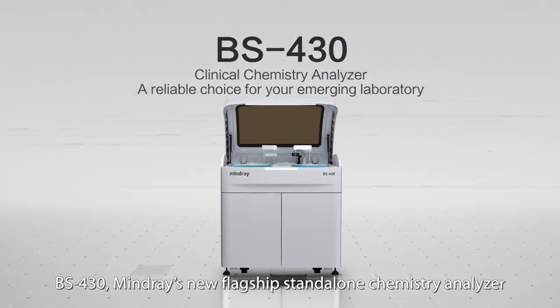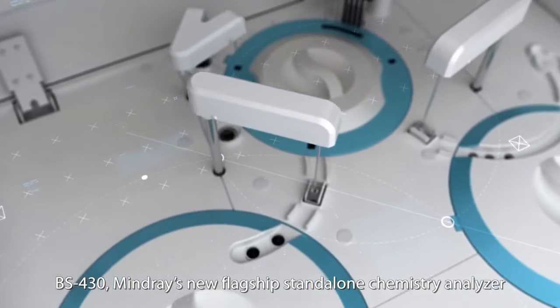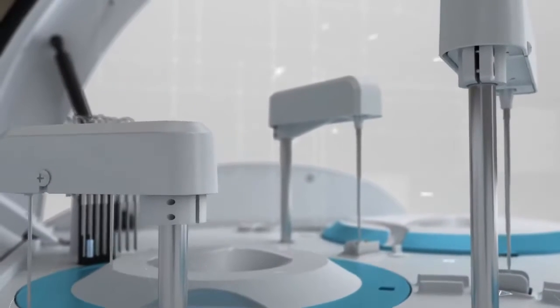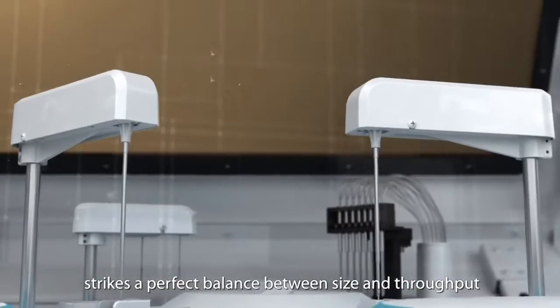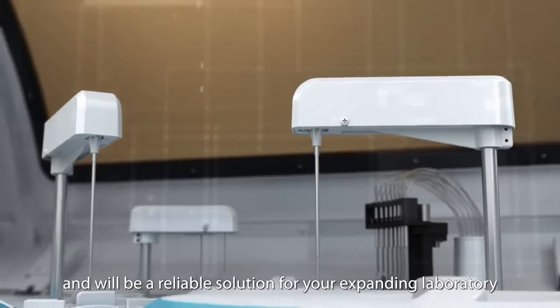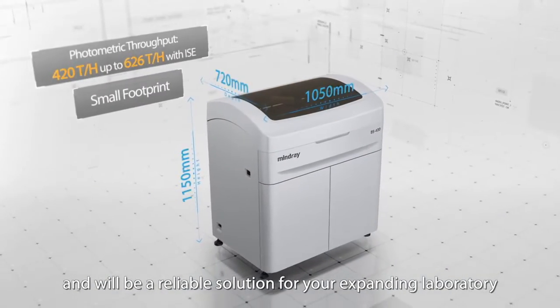BS430, MindRay's new flagship stand-alone chemistry analyzer, strikes a perfect balance between size and throughput, and will be a reliable solution for your expanding laboratory.